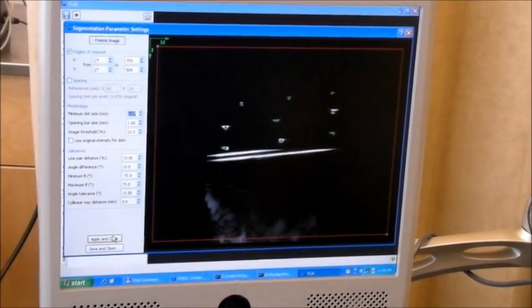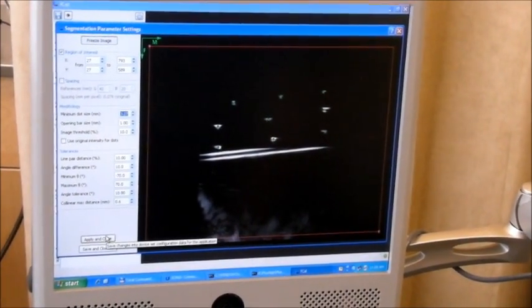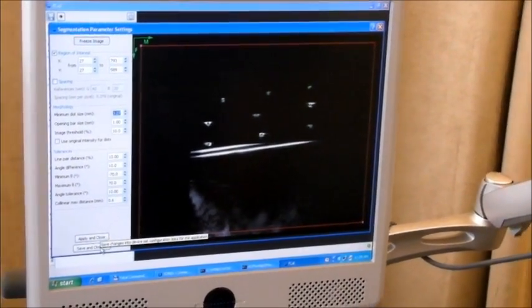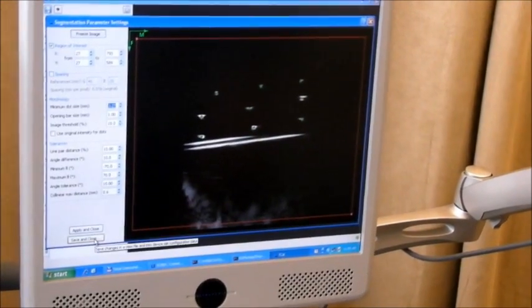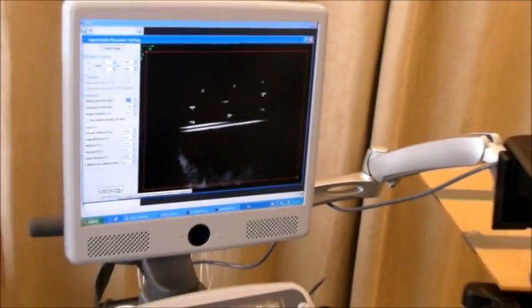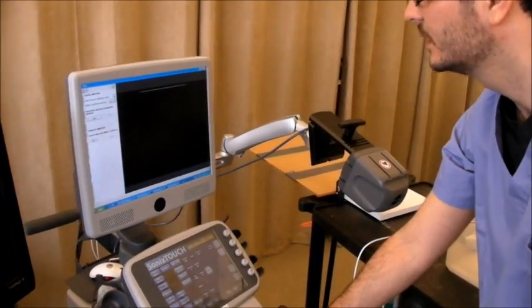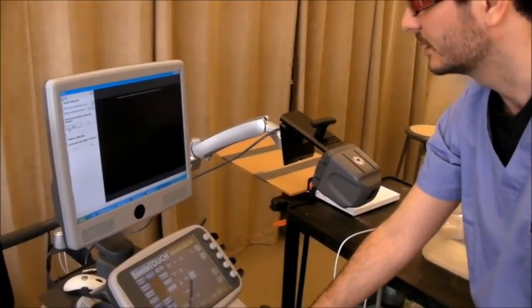I'm satisfied with it, so I just click apply and close. You can save the configuration file if you want, but it's not necessary, because we will save it at the end anyway.